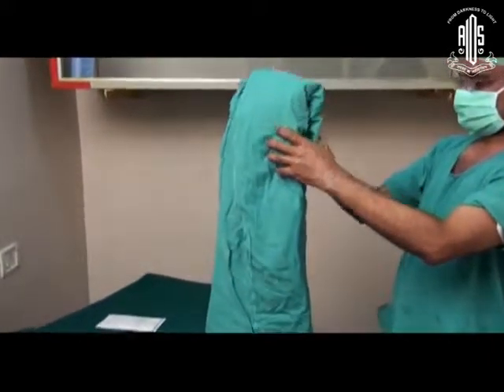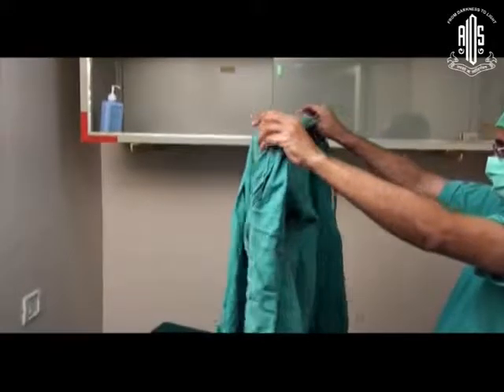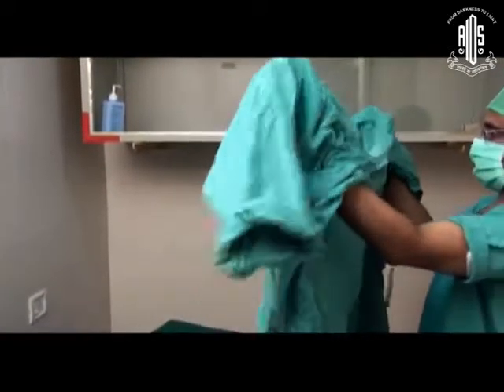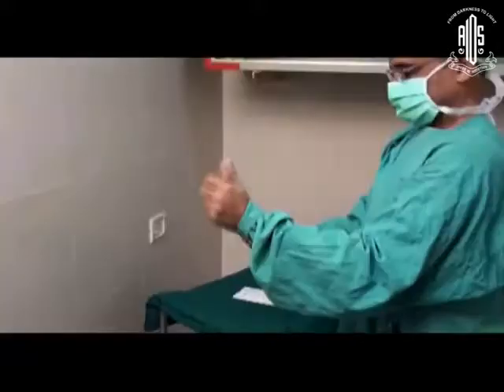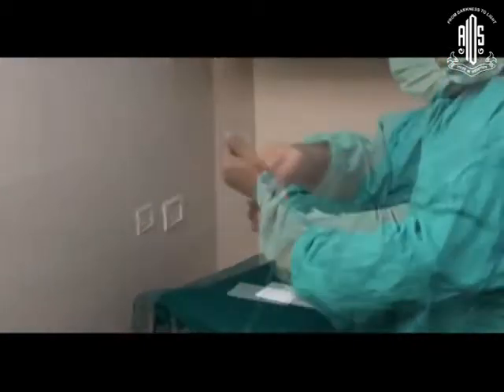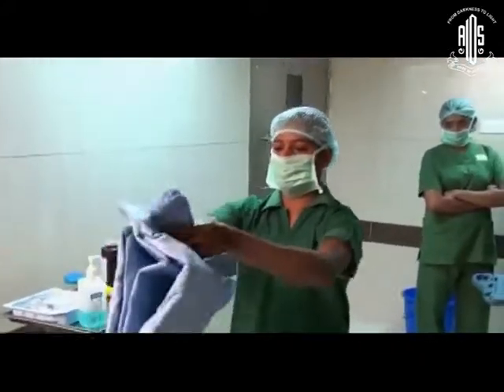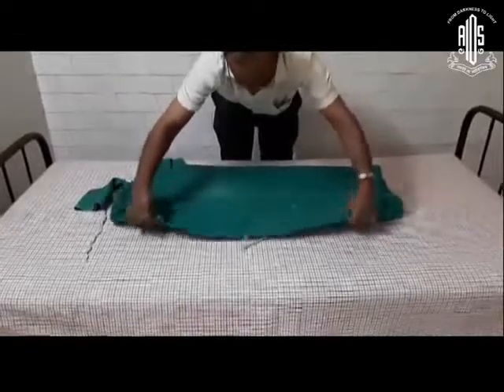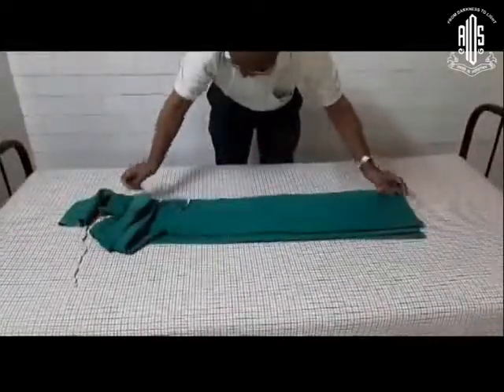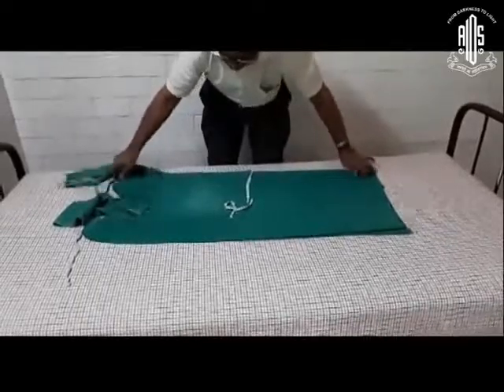Now look at the apron — see where he is holding it before wearing it. There are disposable gowns available. There is a way of folding the gown: the back flap is folded vertically, then the entire gown is folded in half and then into three, making a W-like shape.